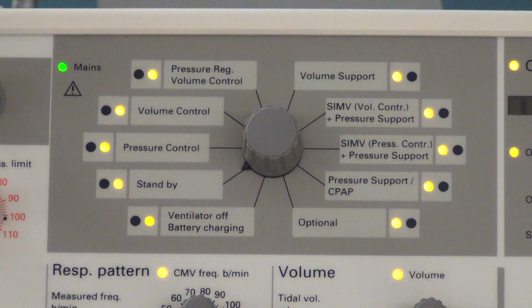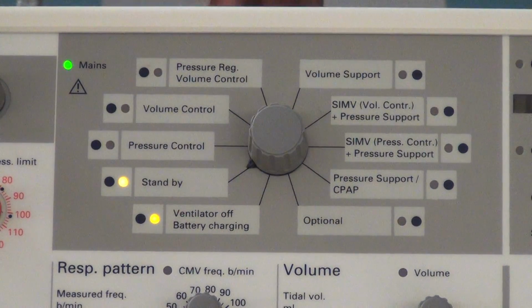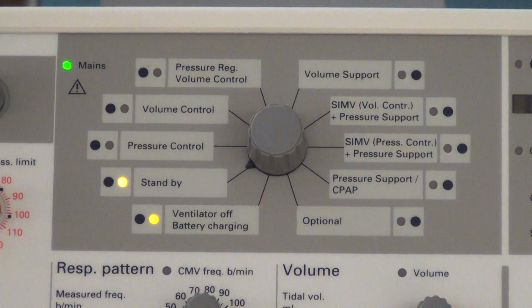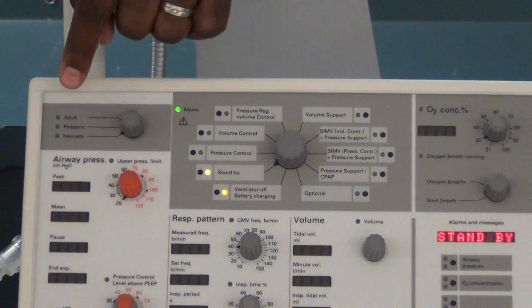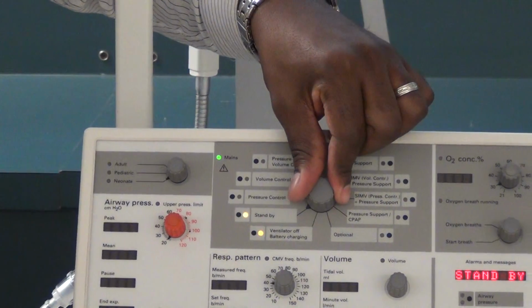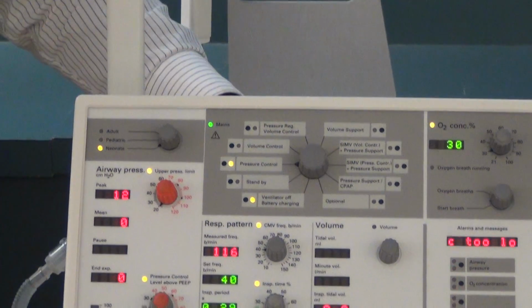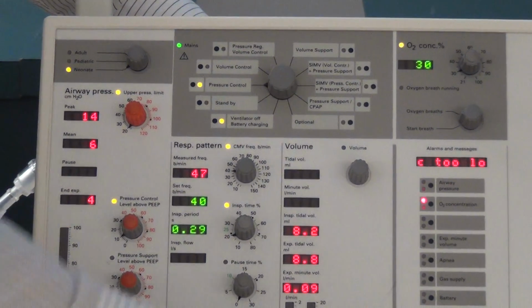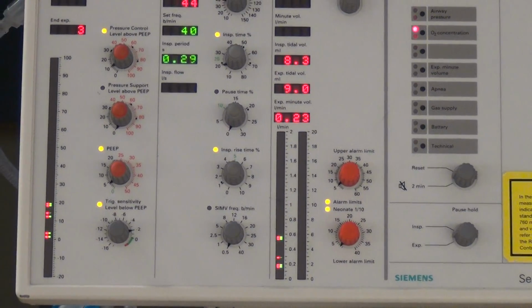Okay? All right, so we're going back. We're in our standby mode. So what type of patient do you want, Josh? How about neonate? All right, so Josh wants a neonatal patient, so we have it set on neonate, and we're going to use pressure control for that patient. So we turn it on, it lights up, it flashes at us. Our silence button is here, so we flip that down and we have silence for 2 minutes.